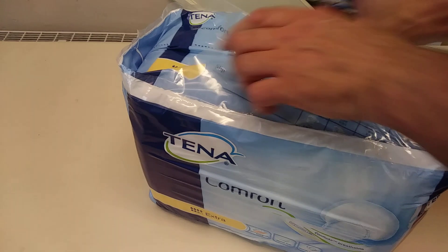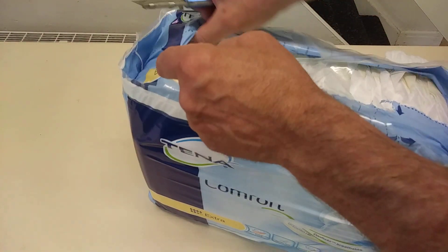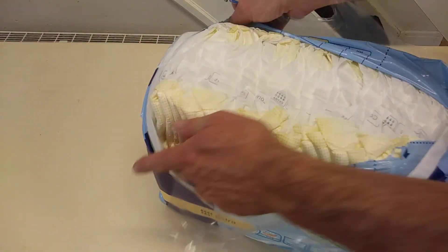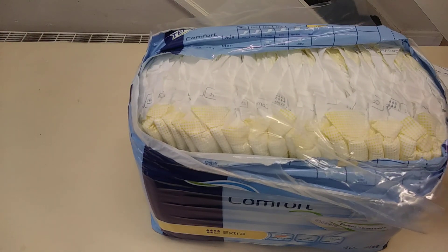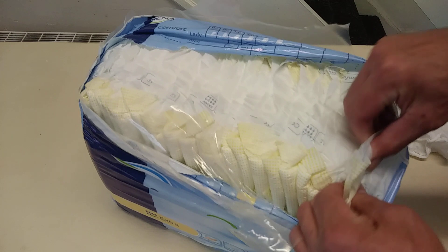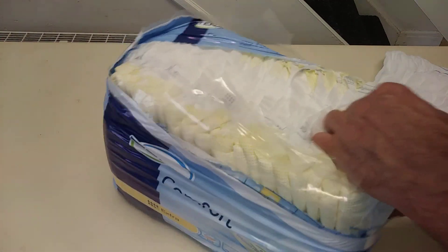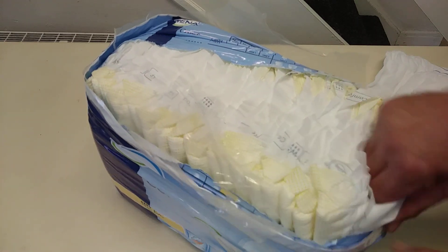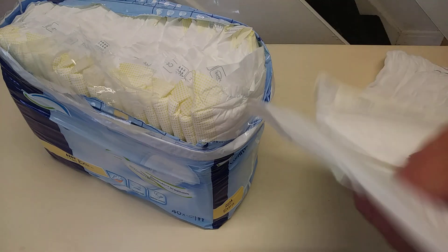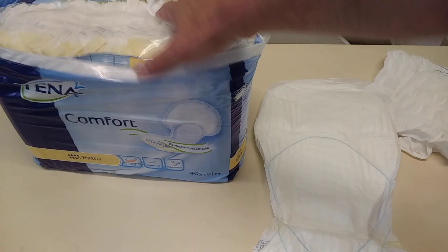So we're just going to open up the pad. Inside you've got all your pads, just literally lined one up to the other. They call them men's nappies, but actually they're not — these are for people with incontinence problems. They're not nappies; they just help you with your everyday leakage problems. That's what they look like fully stretched out. This is an extra.